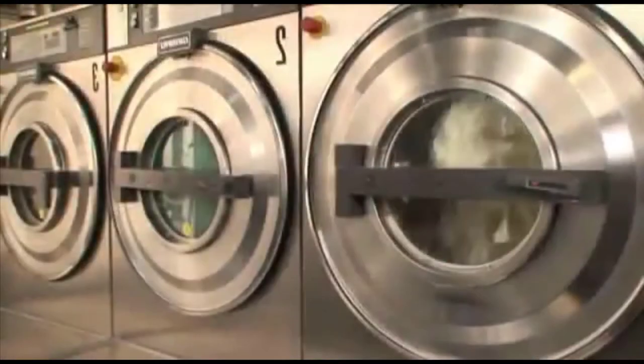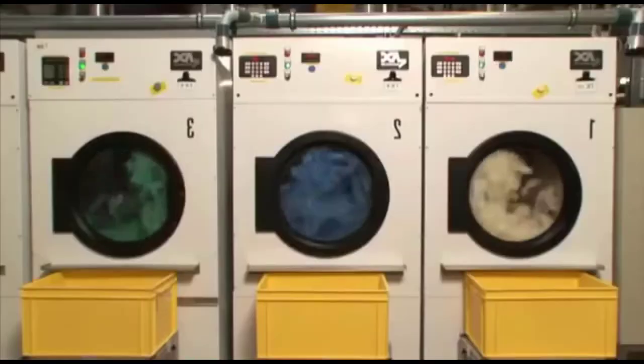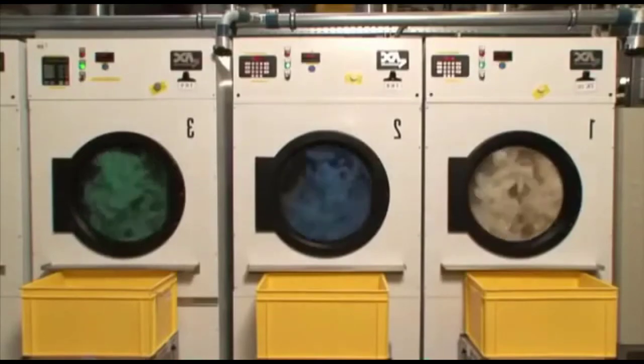Now, the dry condoms are stripped from the glass formers to be washed and dried. During this process, the condoms receive the required dry coating.